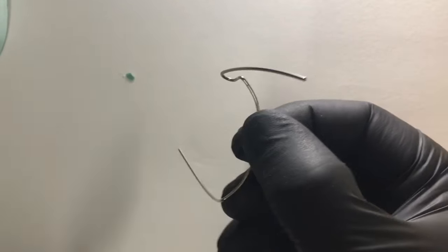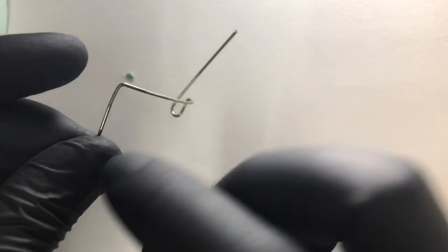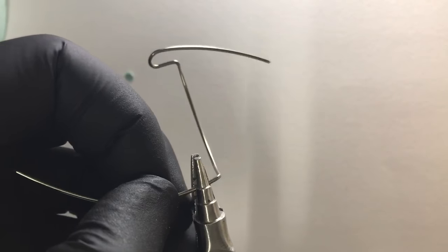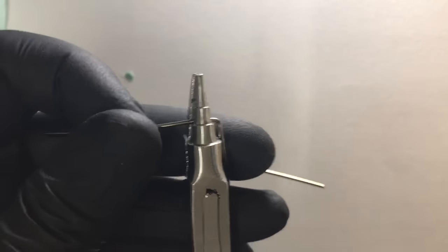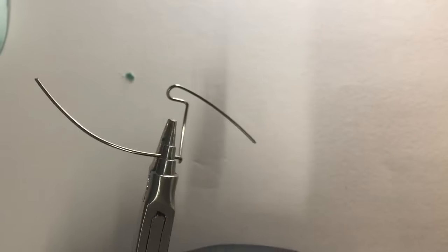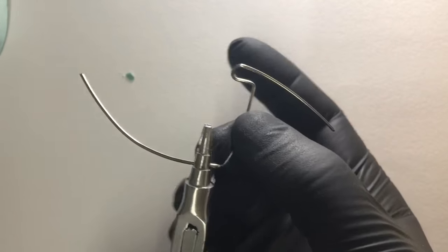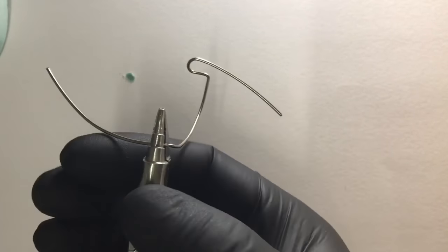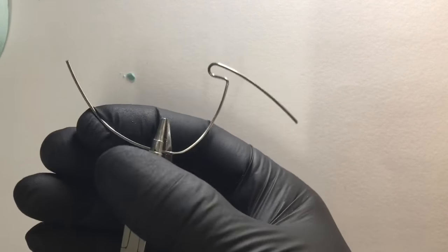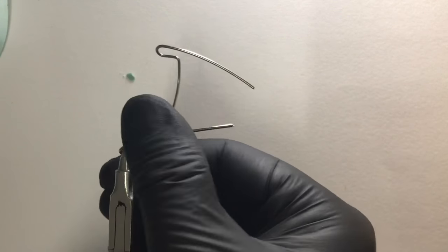The plier should not be changed at any point during a bend. Now you can see that we have formed a complete U-loop. Similarly for the opposite side, we again engage it in the central groove of this universal plier. Remember to keep the plane of the arch at the same plane. We need to bend it without distorting the plane, holding it very firmly and giving a complete U-loop bend.